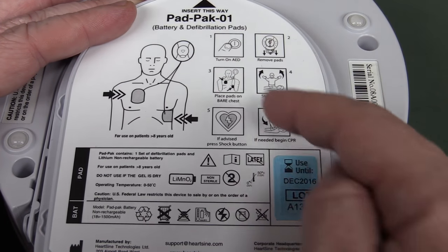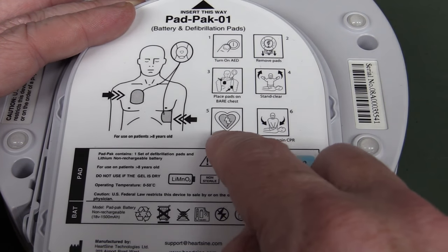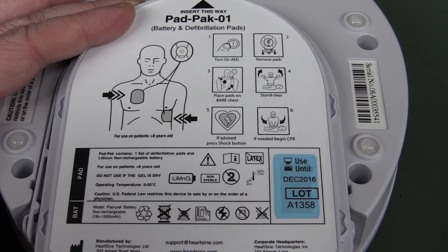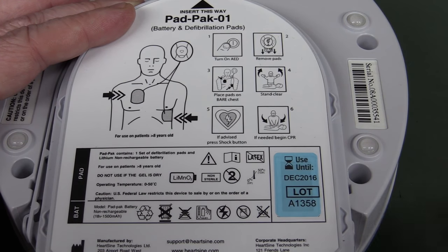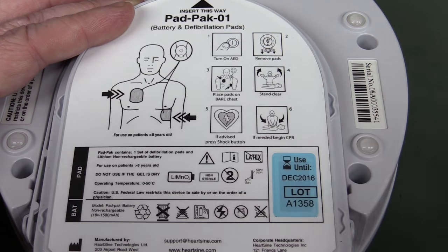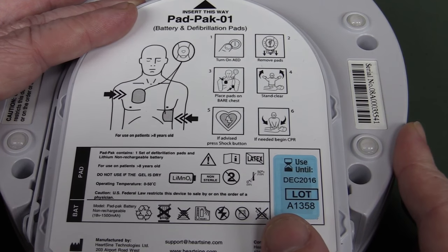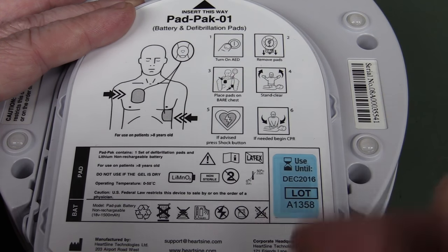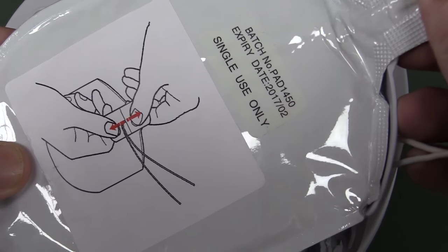As I said it's got voice prompting, so it'll have a pre-recorded voice chip — one of those vocoder type chips pre-recorded in there — and if needed begin CPR. I think it only has one go at it or something like that. Anyway, certainly with the lithium primary batteries this wouldn't be... although you can actually get new pads for it, I think. These were expiry 2017 — it says December 2016 — but George said that this one had expired.